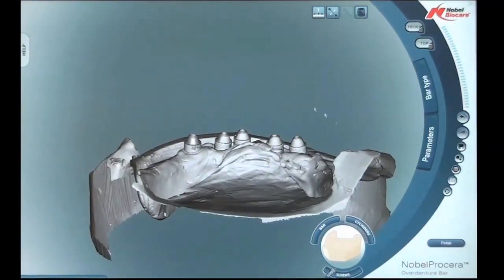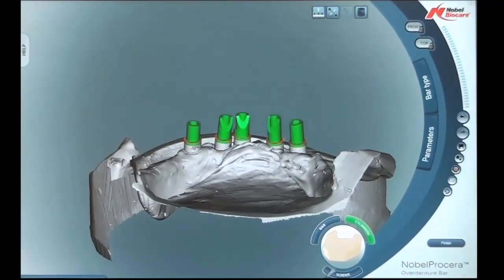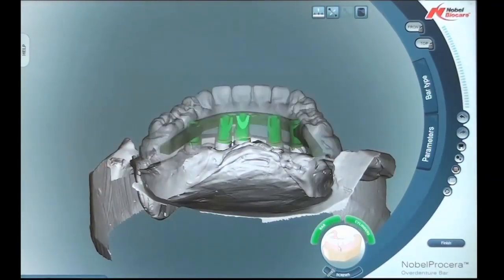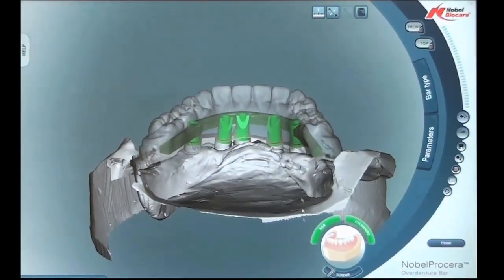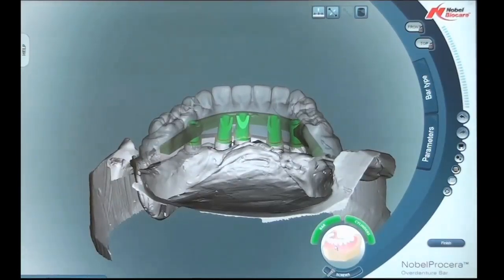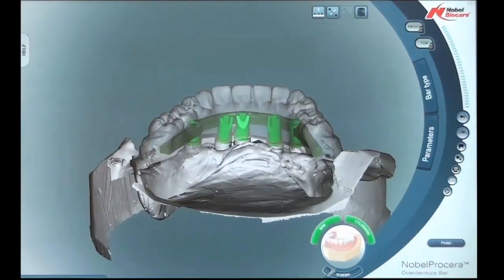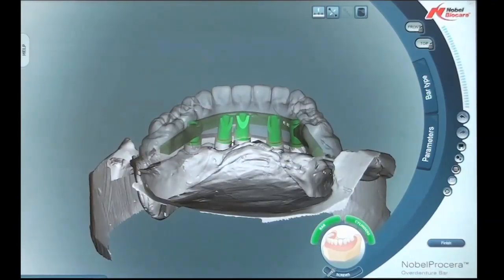Notice that we're dealing with the multi-unit abutment, so all the interfaces will be above the soft tissue. By clicking on the cylinder we're able to bring the cylinders in. Click on the bar and you bring the bars in, and then you also have to click on the model. The clear transparent model will come on superimposed on top of the bar, so now you can see the interclusal space you're dealing with. Another click on the model will make it a solid model, and a double click will make it into the transparent mode so you're able to see the bar superimposed under the denture setup.